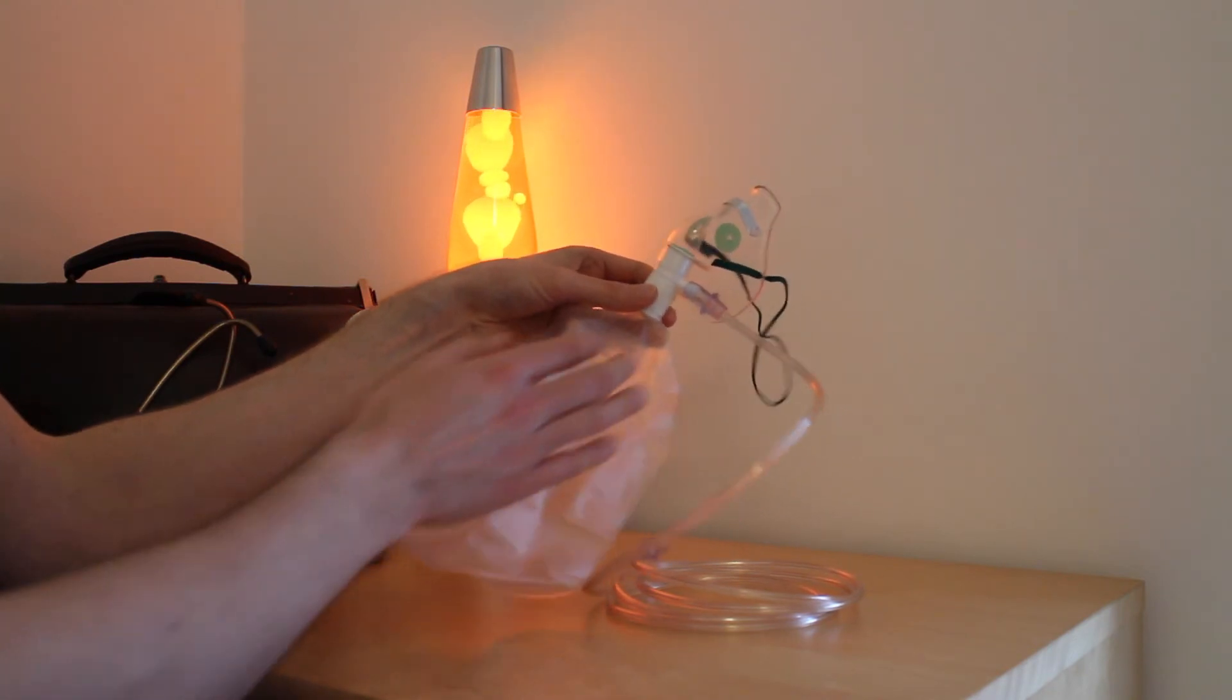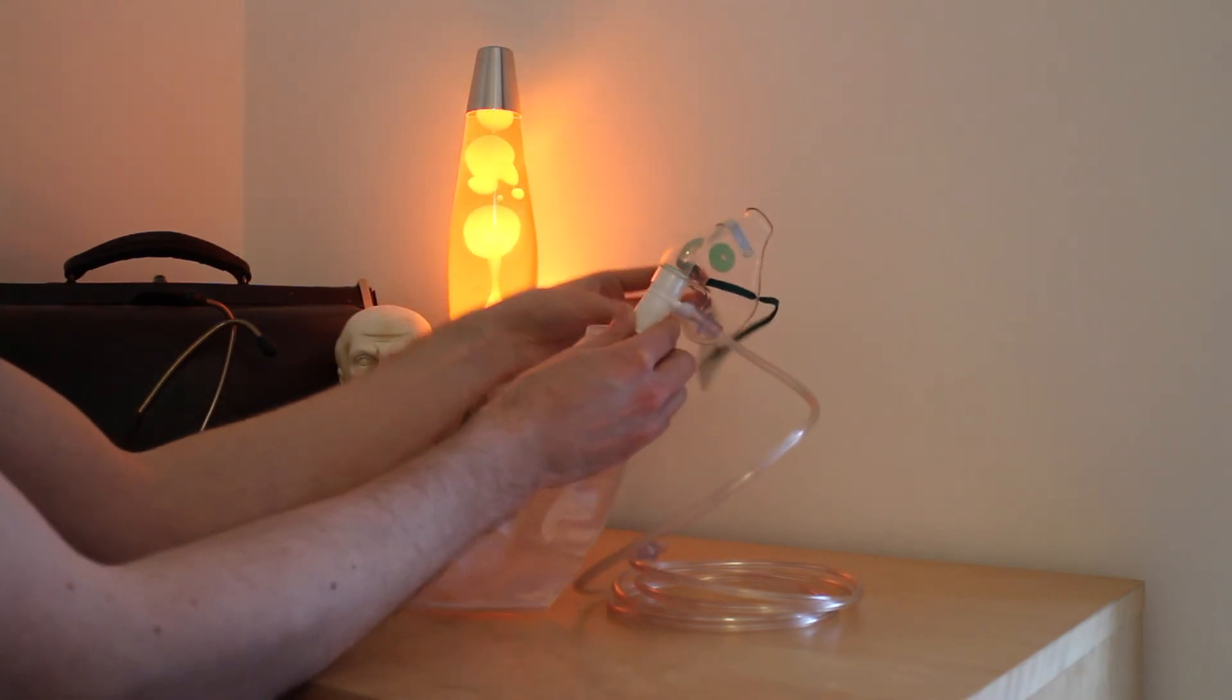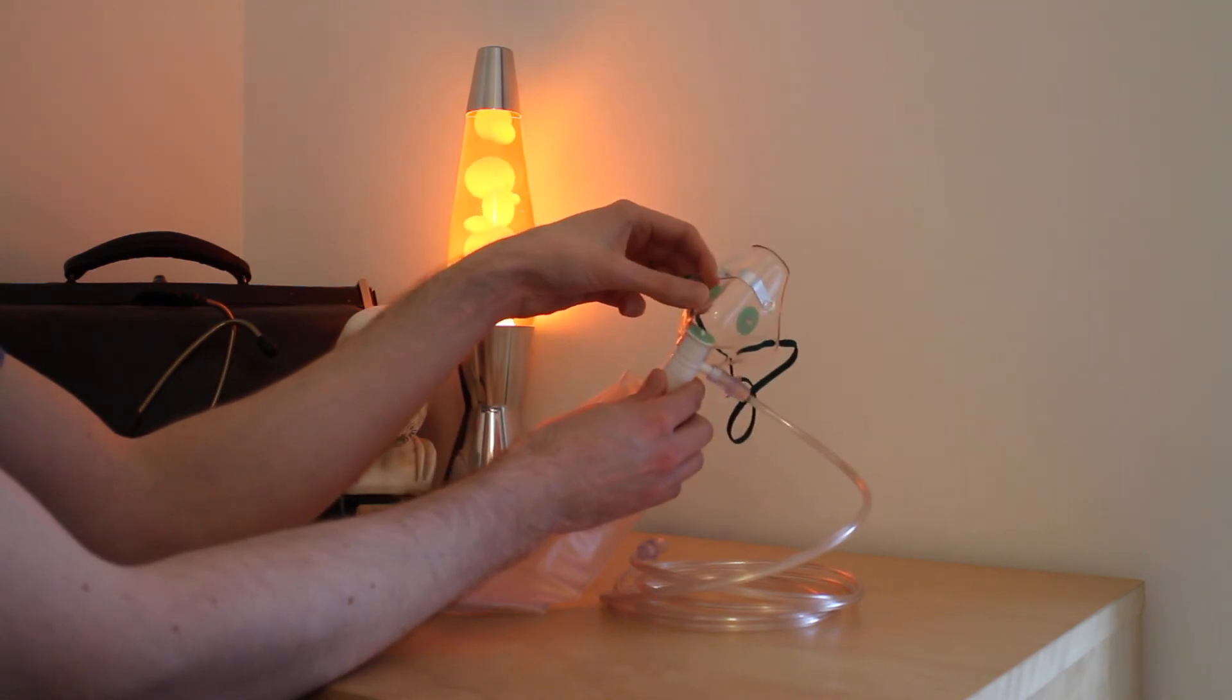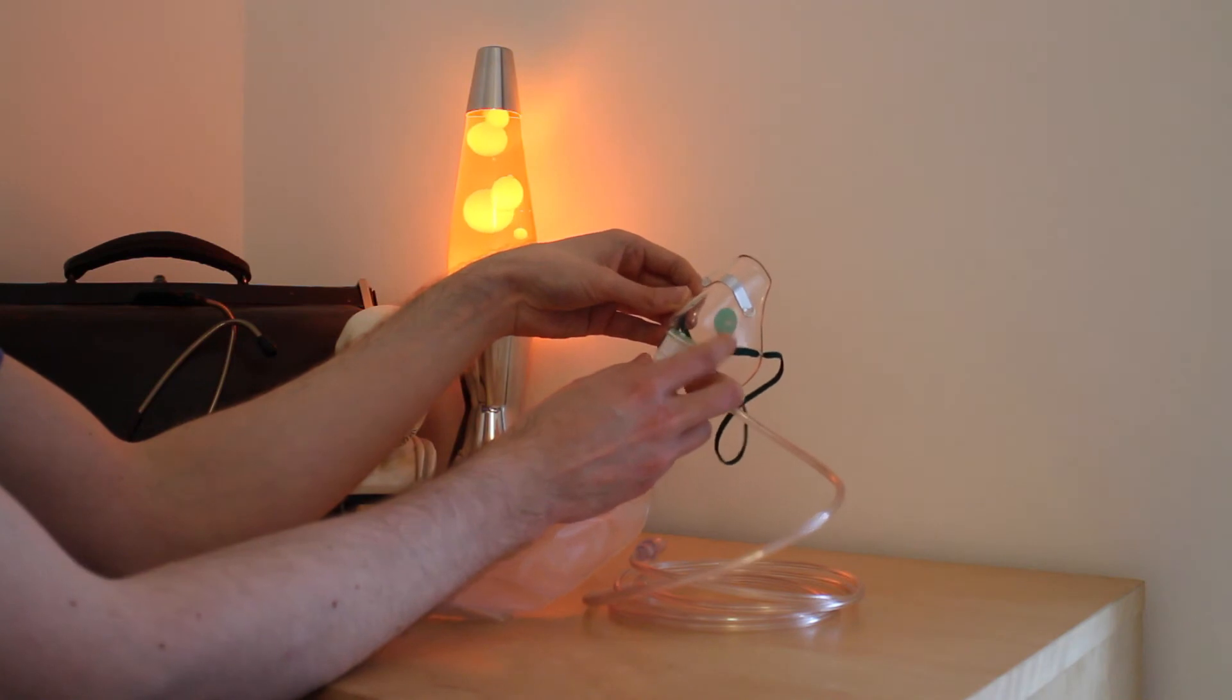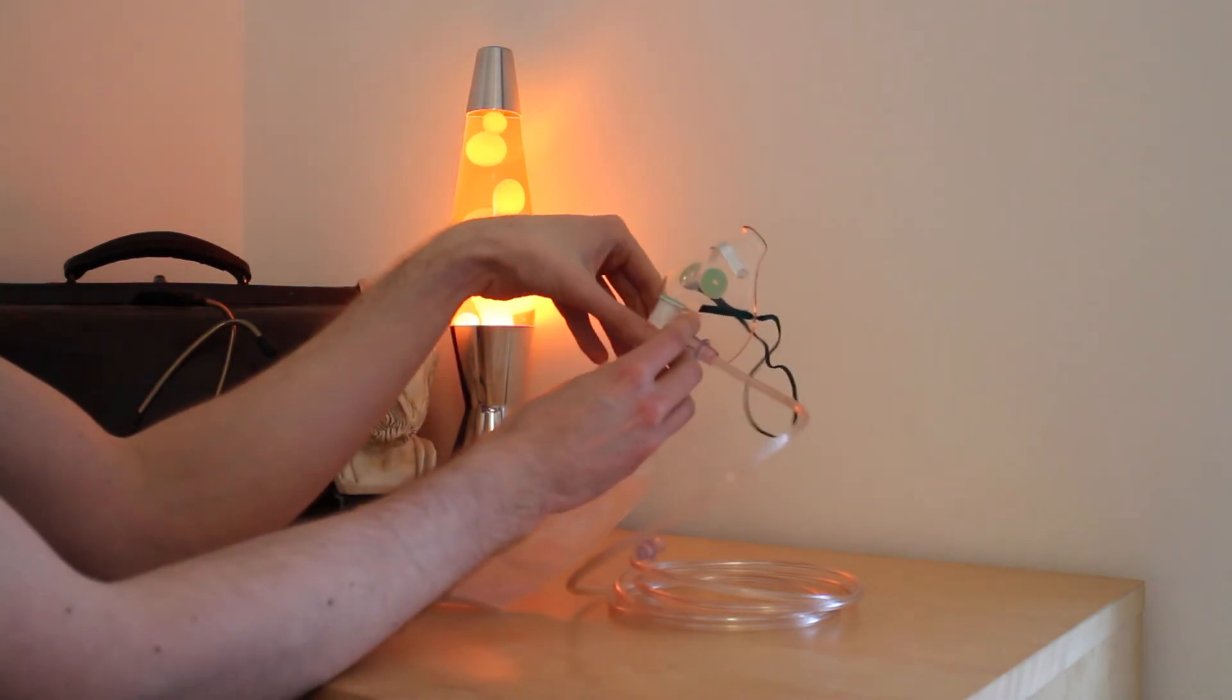Complications of its use include that the mask can get stuck on the patient's face. However, this mask is designed with two holes. These holes act as a valve to prevent the seal from becoming too tight on the patient's face.